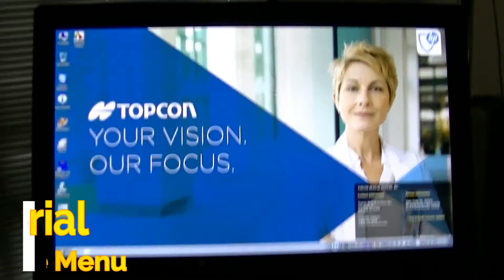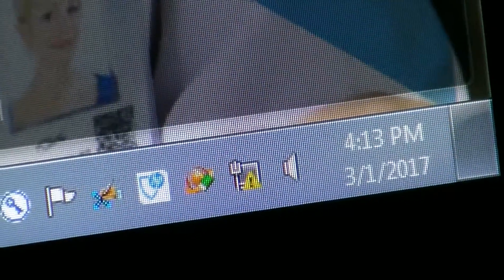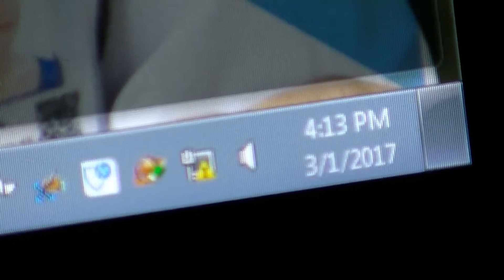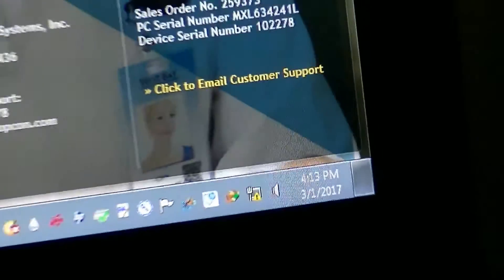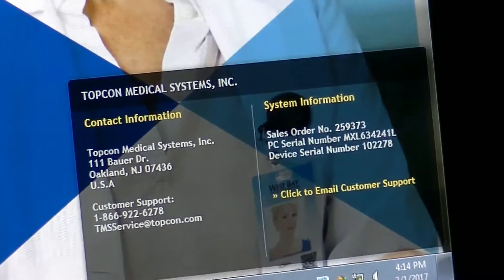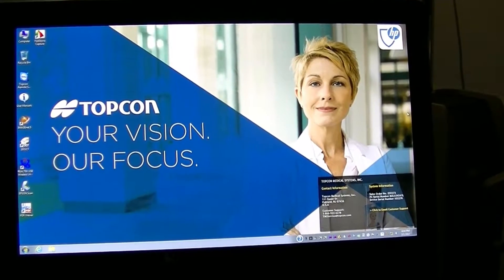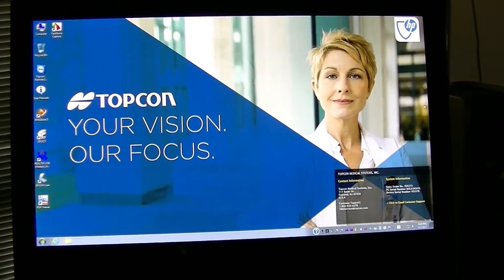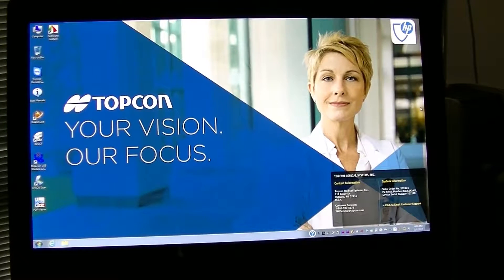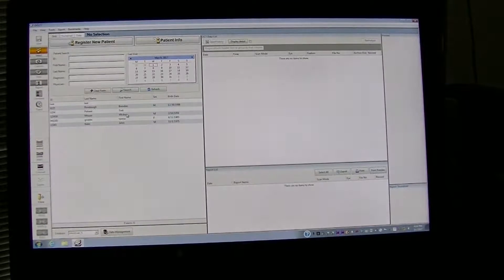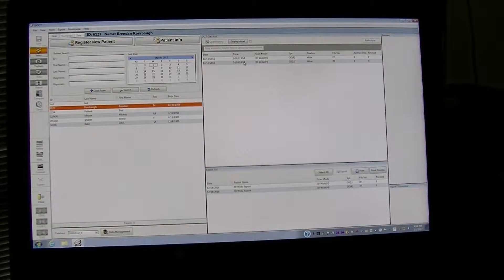What we're going to do is, if you look at the date and time on your computer right here, you're pretty sure that's going to be correct — 4:13 p.m. on 3-1-2017. That's correct. Now, if you take a reading using the 3D OCT, I'll just let the report come up. And you go to your list here and bring up a report.